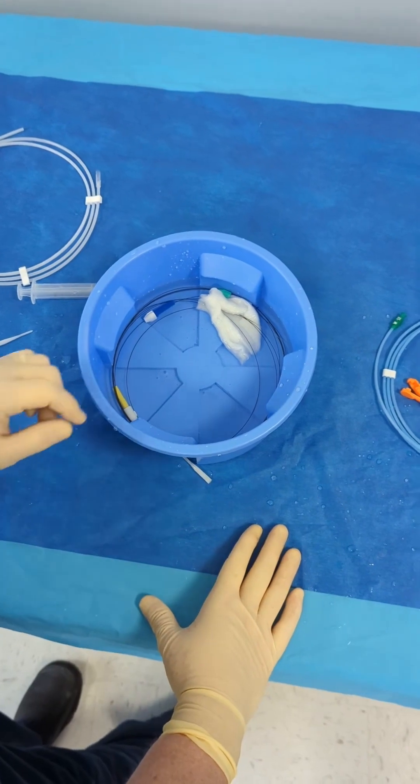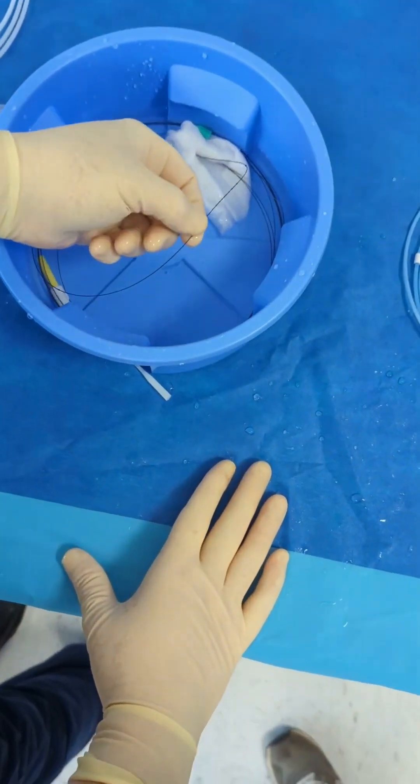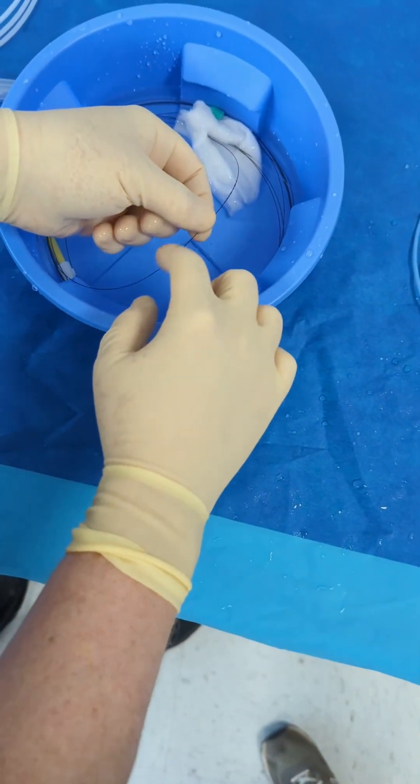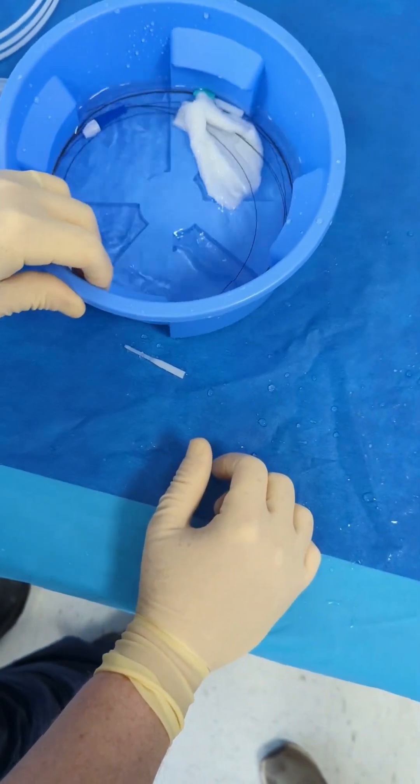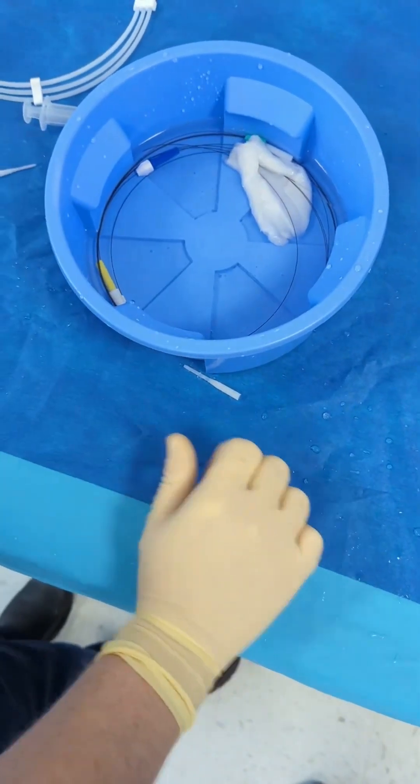And the bonus tip that I was talking about: wires will get sticky and stick in these things on the wire, and if you just shake it back and forth like this, you'll see how muddy your water gets.